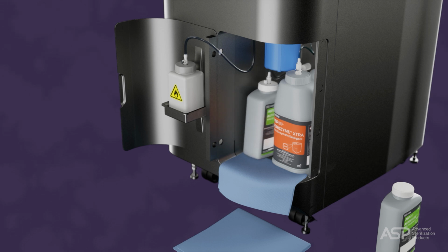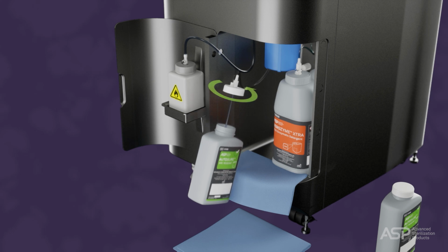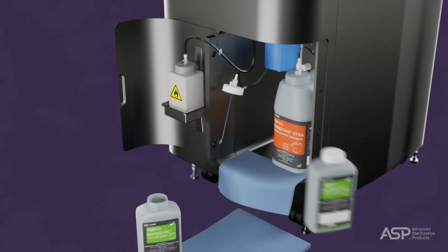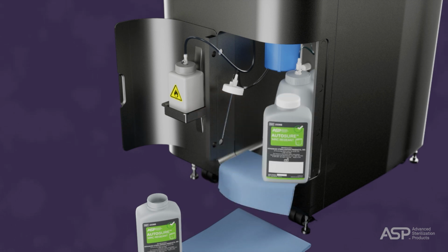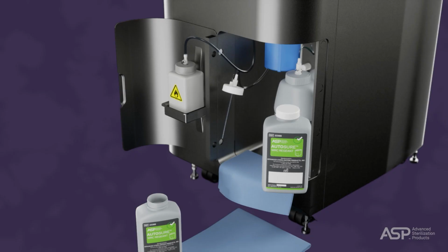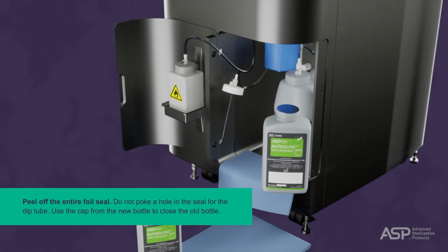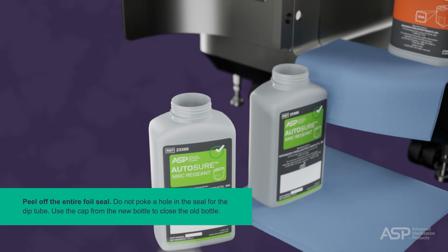Next, turn the used AutoSure MRC reagent bottle cap counterclockwise to unscrew it from the dip tube. Invert the new AutoSure MRC reagent bottle 5 times, followed by vigorous shaking. Tap the Confirm button. Then open the new AutoSure MRC reagent bottle and peel off the entire foil seal. Do not just poke a hole in the seal for the dip tube. Use the cap from the new bottle to close the old bottle.